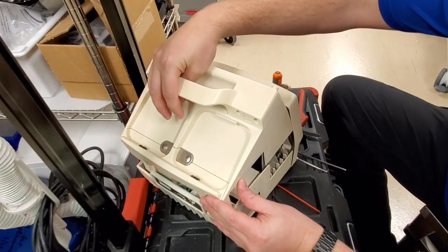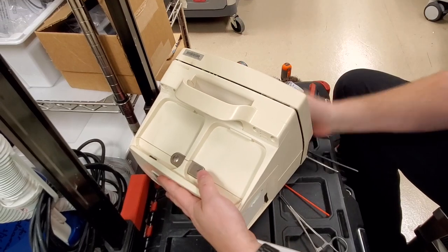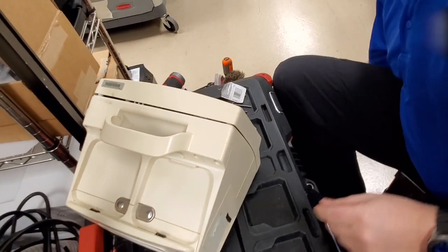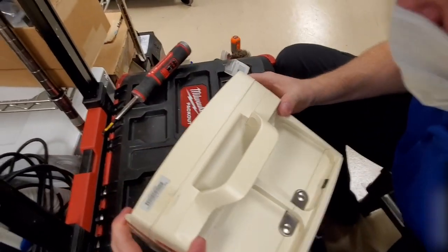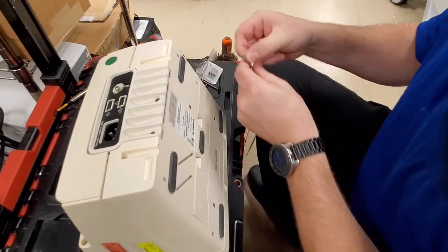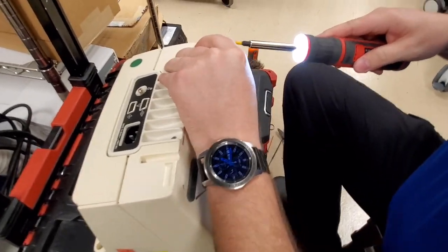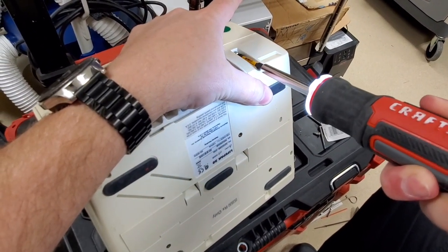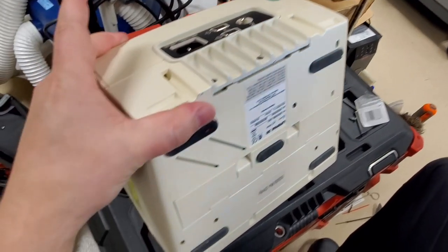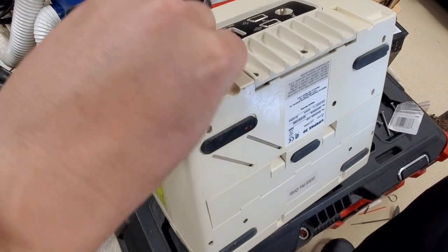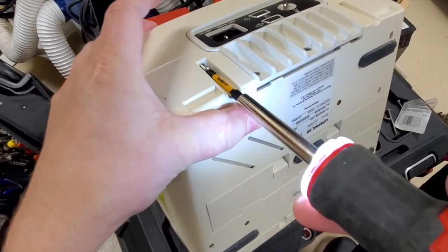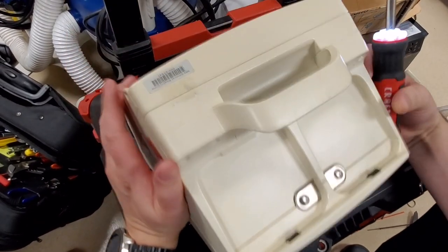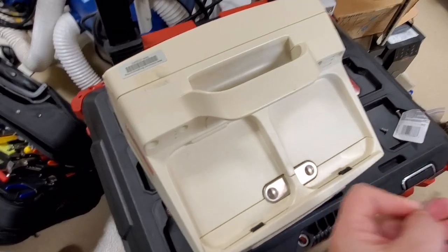I'm going to put the case back on. Get my tooling out of the way. Notice I'm holding the clamshell together with my hand while I'm securing it. Alright. So I always put the longer screws in first to make sure that the front plate is nice and even.